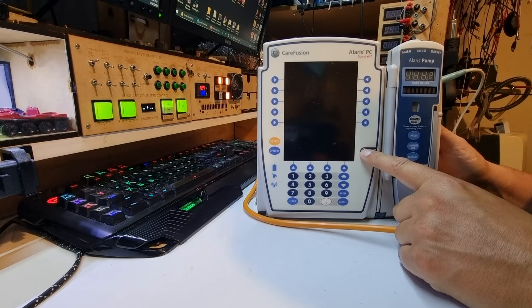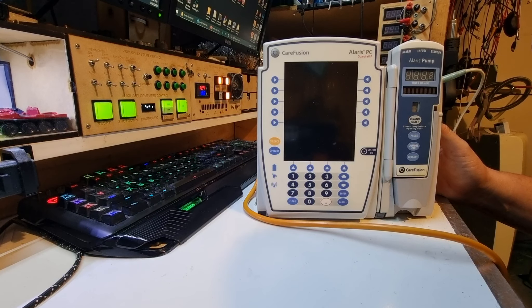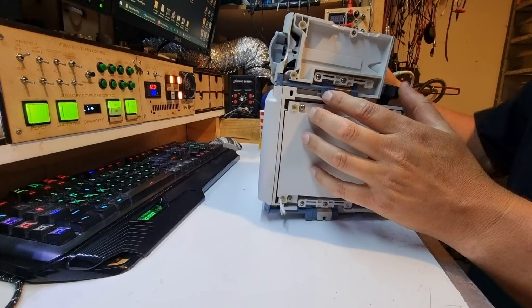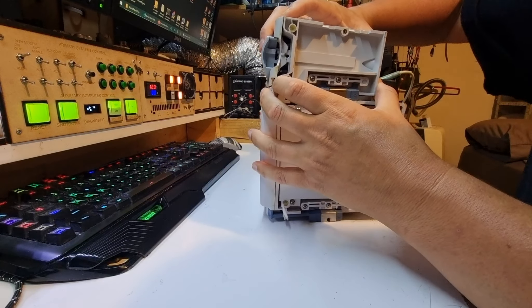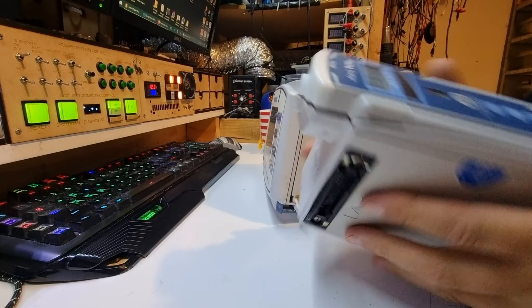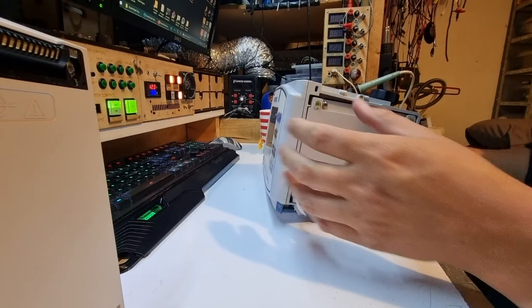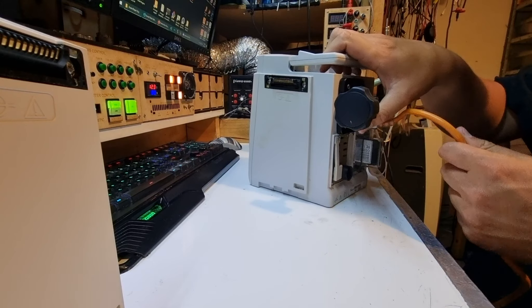The battery is very flat, so we're going to open it up and have a look. Now these units on the side are additional add-ons — kind of like add-on video cards. They can be released with this little latch along the side here and they come off. They each have their little bus connections across there — they connect in a parallel bus. So we can isolate that as a problem by removing it.